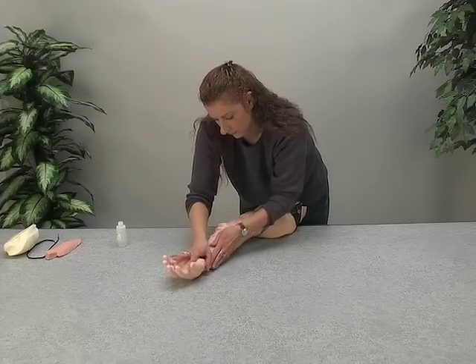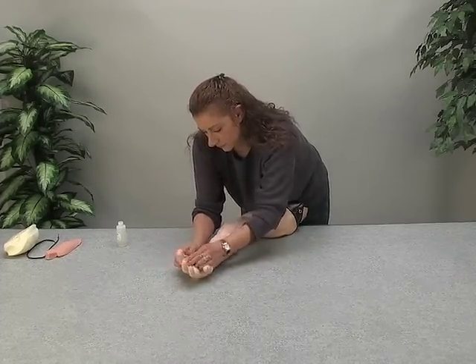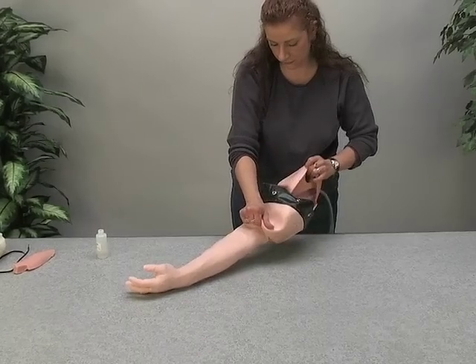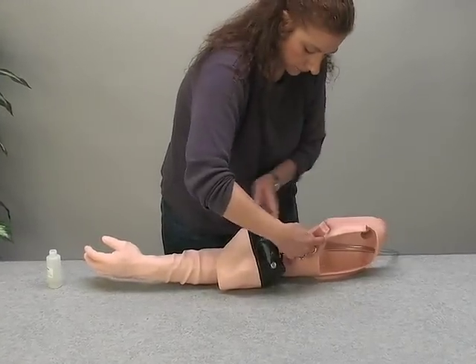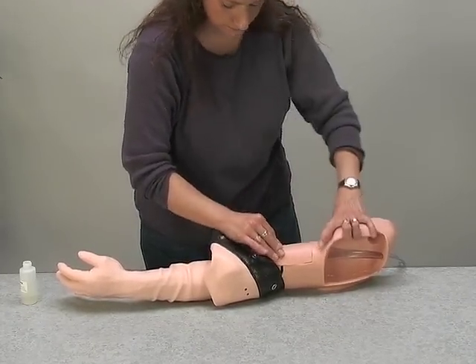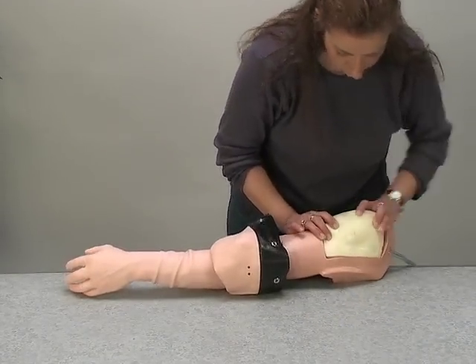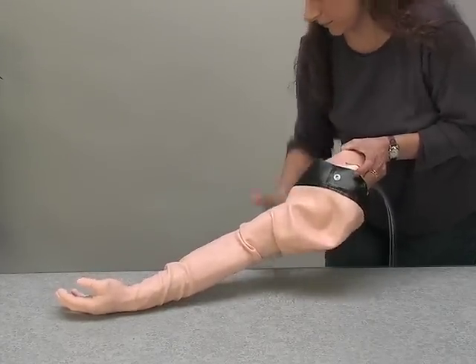After the fingers and wrist are properly placed, massage the skin over the core for a snug fit. Feel along the tubing channel to make sure the tubing is correctly seated. Tubing that has moved can usually be moved back into position by working on the outside of the skin. Pull back the skin, insert the bicep muscle, and foam shoulder pad. Pull the skin over the remainder of the arm, being sure that the muscle and pad remain in place.